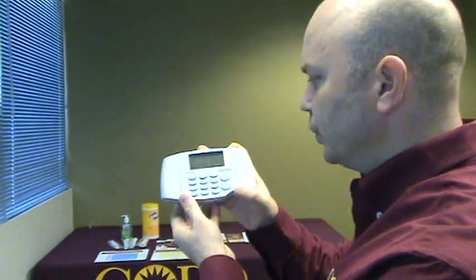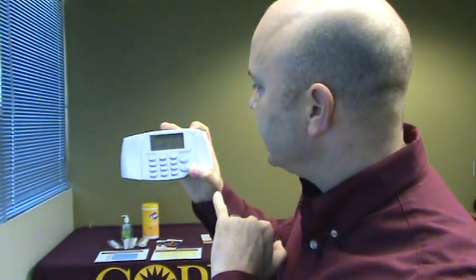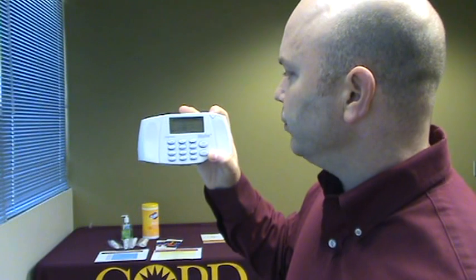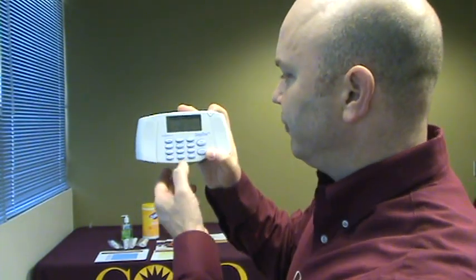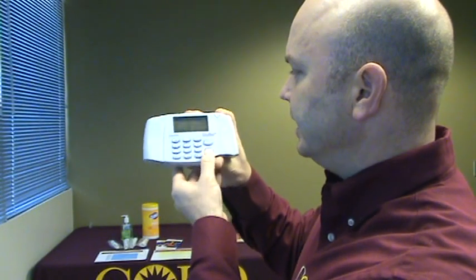You will go to the main screen. The main screen says perform test, view results, print results, configuration database, and so forth. So what we're going to do is perform a test — press enter.